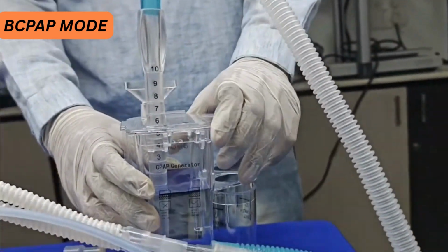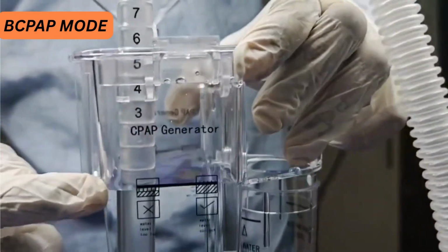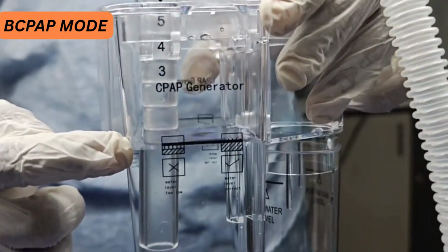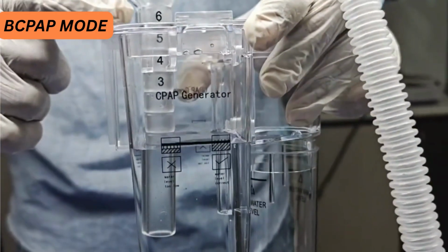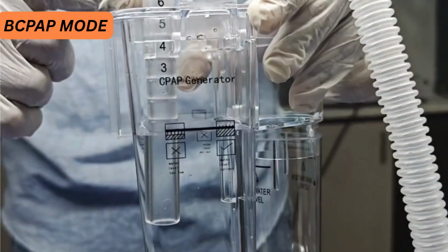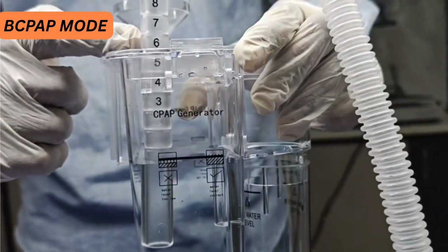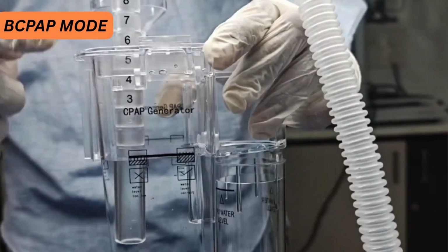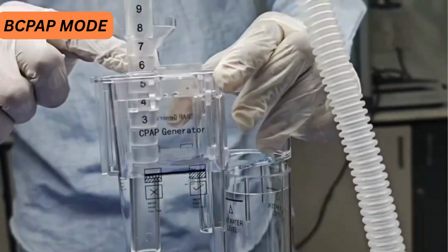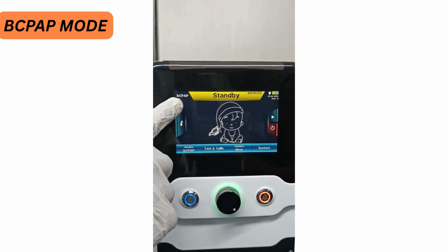One more thing we need to confirm, that while using this bubble CPAP jar, the water level should be sufficient. If the water level is low, then the CPAP pressure is not your desired set CPAP pressure. If the water level is high, the CPAP pressure will be high. So always make sure that the water level is sufficient in order to achieve the desired CPAP level, whatever you have set. Now the bubble CPAP mode is active right now.